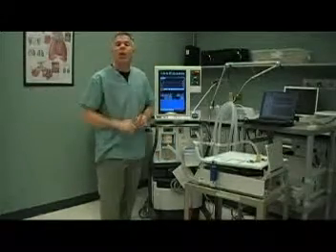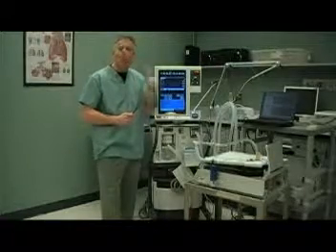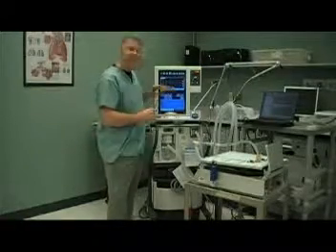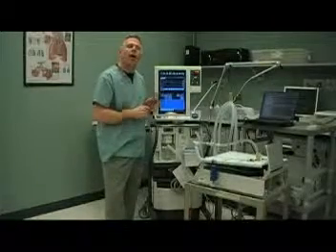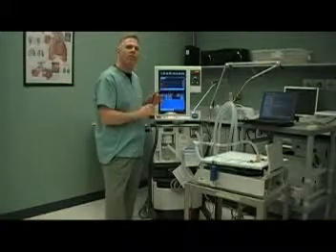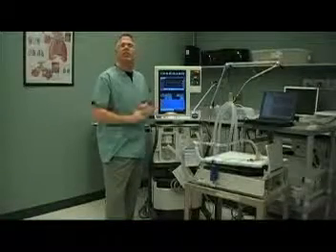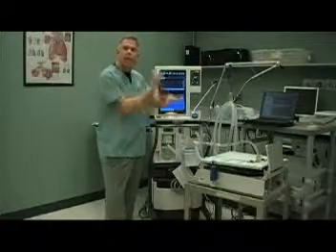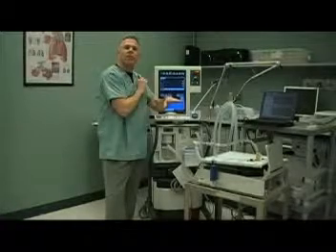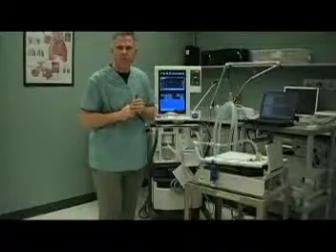In this particular mode — volume control CMV — we guarantee at least a minimum set volume of ventilation for our patient, regardless of lung characteristics. If the lung characteristics change, the pressures delivered to the lungs will change. That's the mode of volume control CMV.